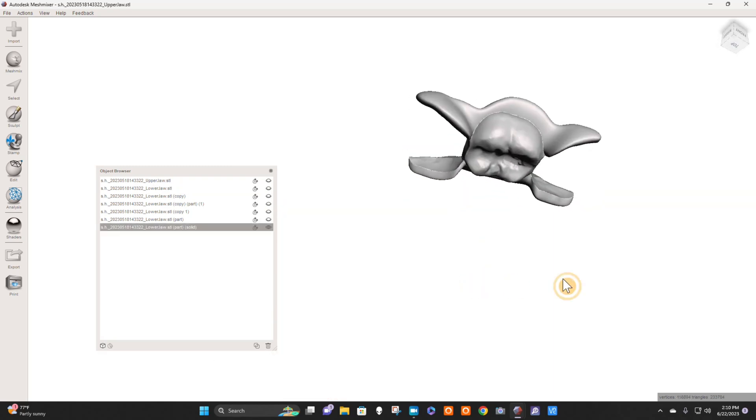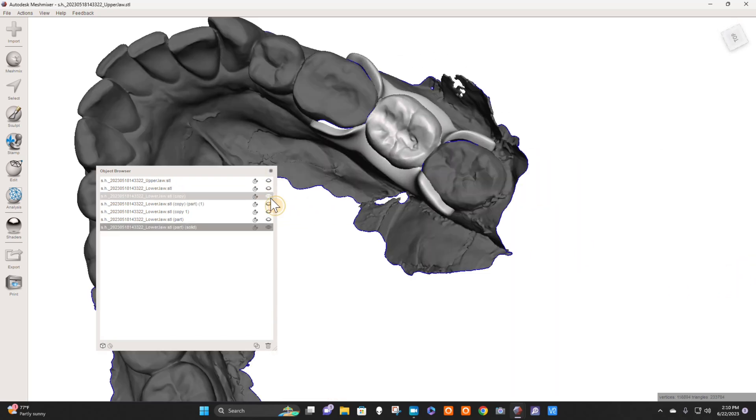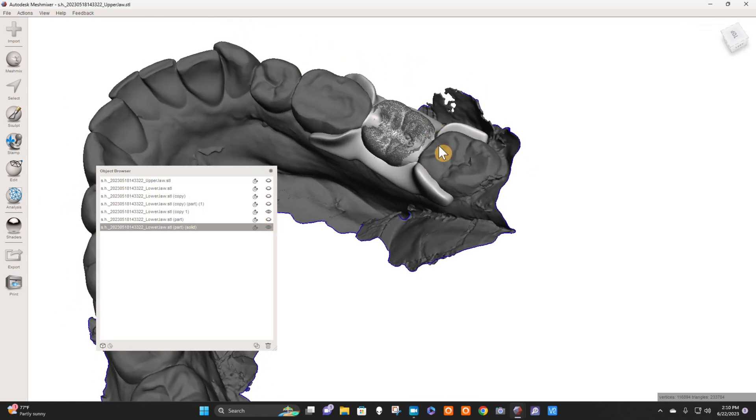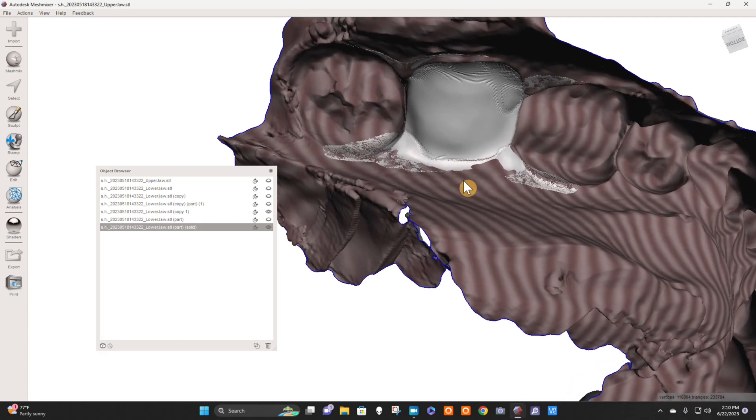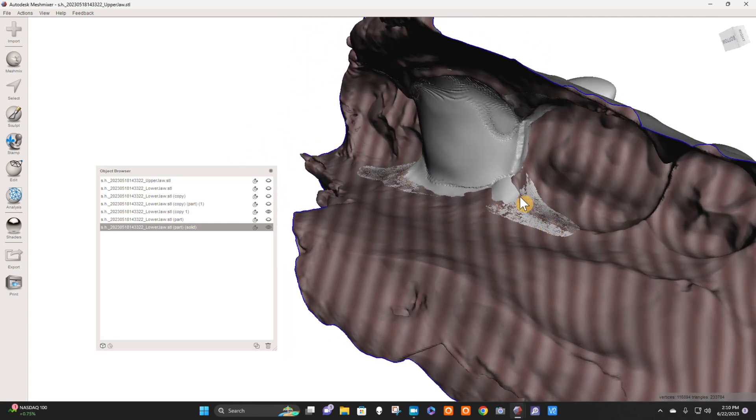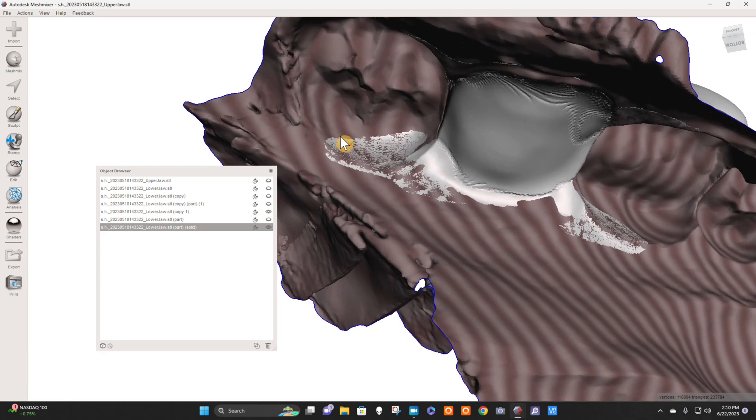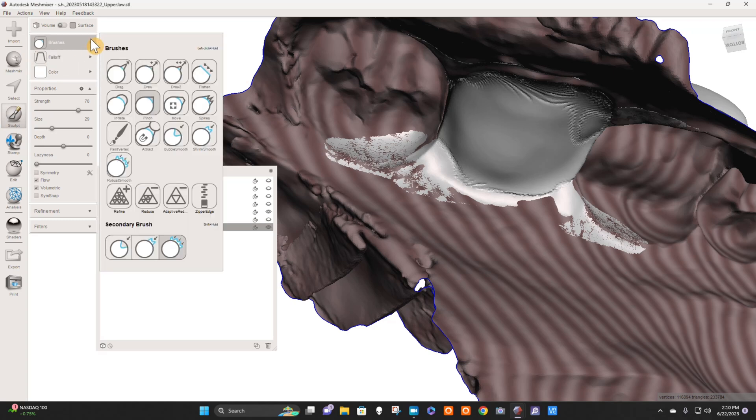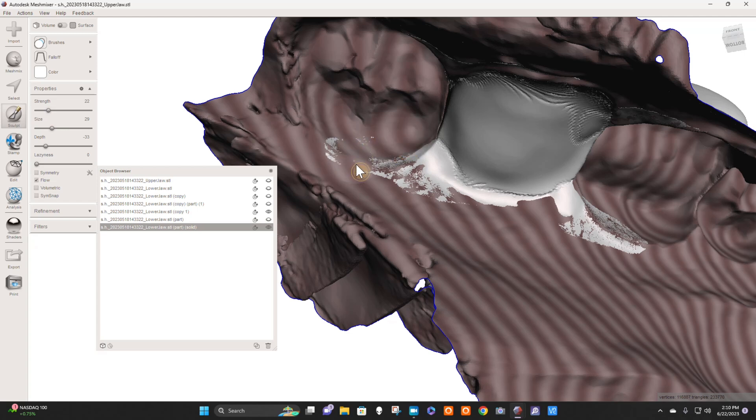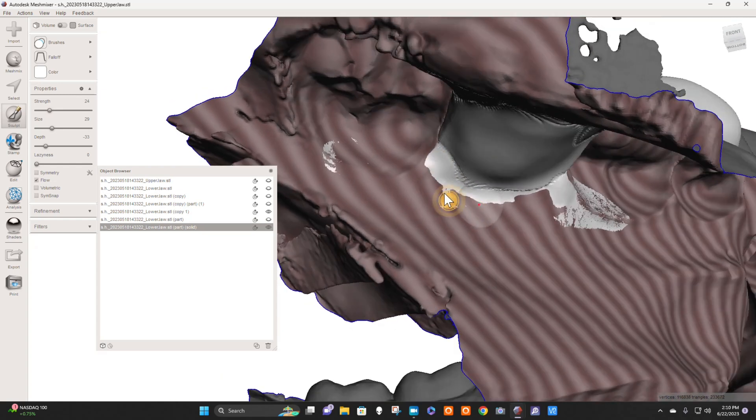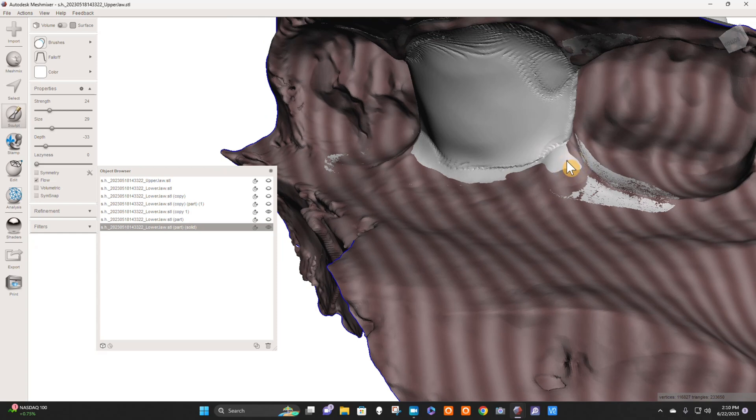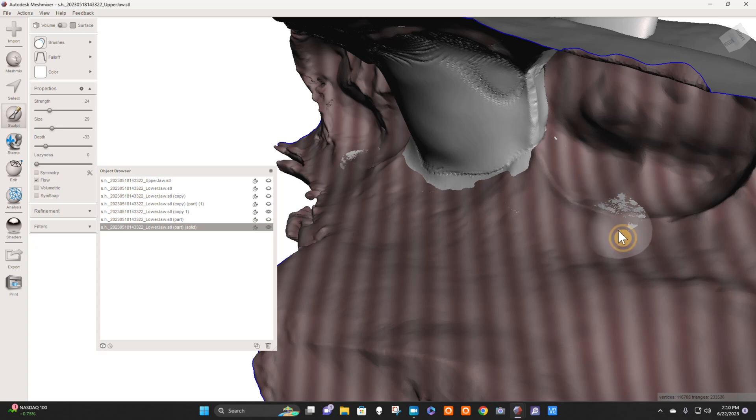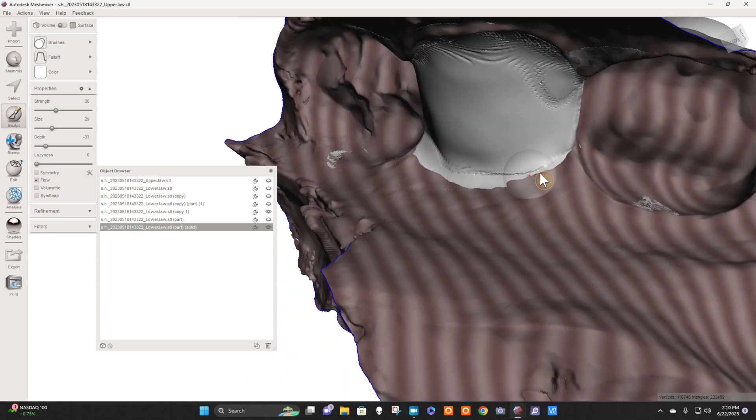So I have this beautiful little guy here that I'm ready to go. Now what I need to do is come in here on my original master cast. This is the unedited model, and look at what I have here. So I need to be careful. I don't want all this contact here; it won't seat. I only want contact in a clasp tip area. So I'm going to go to Sculpt Brushes, Inflate, put my strength down to about 20, and really carefully hold my control button and just alleviate some pressure on the hard tissue. You have some pressure on the tissue here. It's the hard tissue that I'm worried about here. I just want that tip to engage like that. It's the only thing that should be touching.